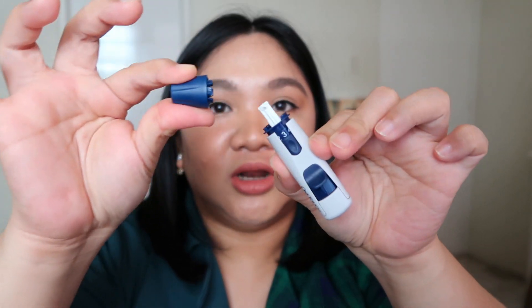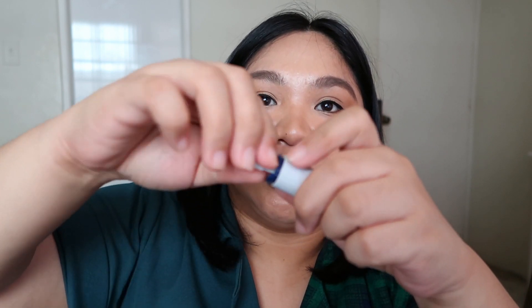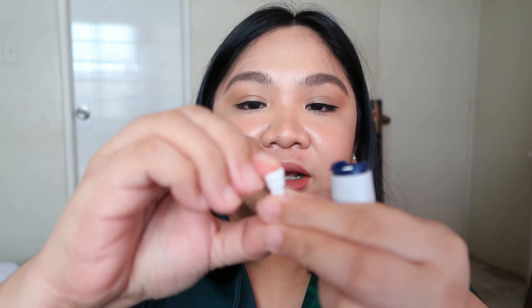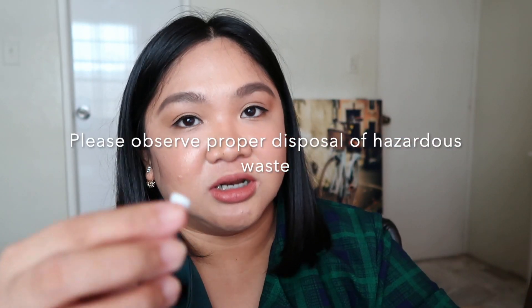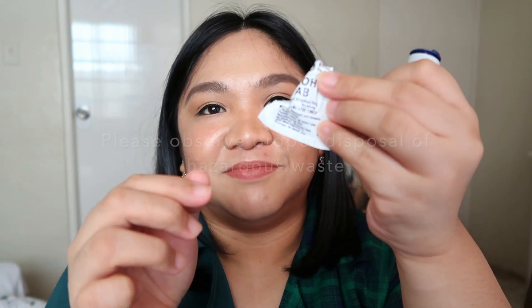After you're done with the blood test, clean up. To remove the lancet: take off the cap or holder, then use the circle cover to re-cover the lancet. Put it back in and twist to pull it off slowly so it doesn't break. It's now ready for disposal — place it in the disposal container.